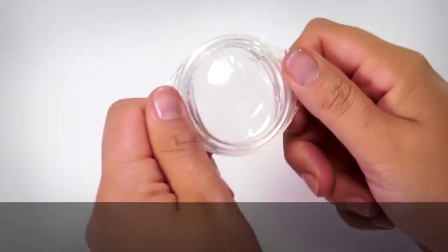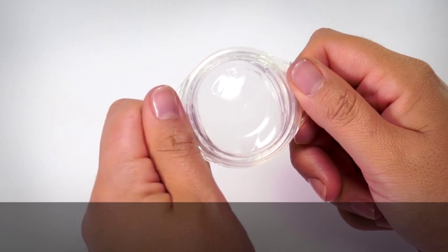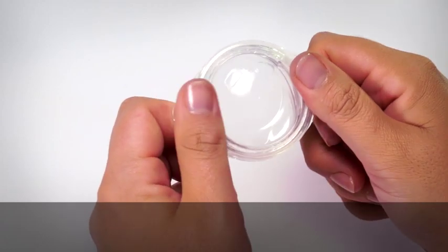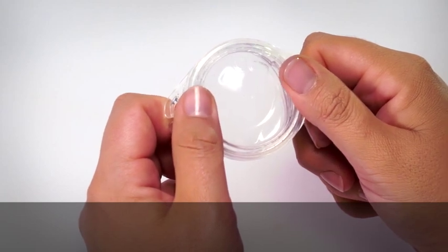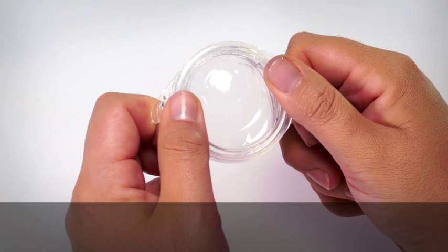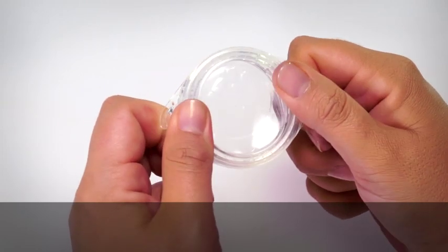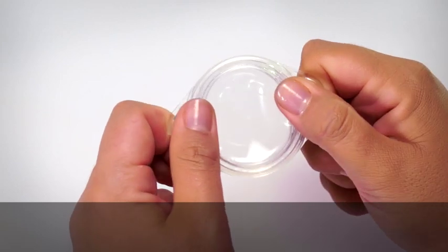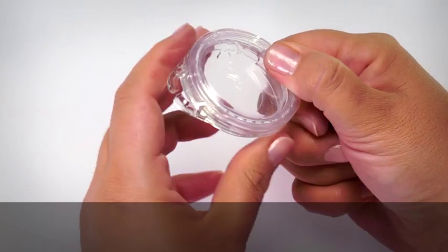Open the Aqua Plus housing, put your fingers under the side tabs and press your thumbs on the raised sides of the base. Be careful not to use your fingernails on the soft top cover as it may pierce the casing. You can gently bend the Aqua Plus side tabs towards you and press alternately on the left then right side until the base pops out.